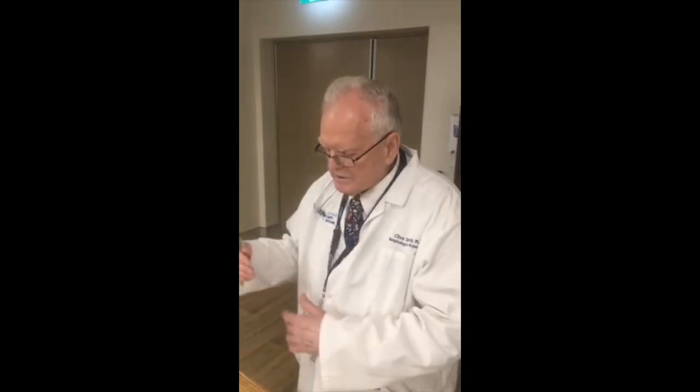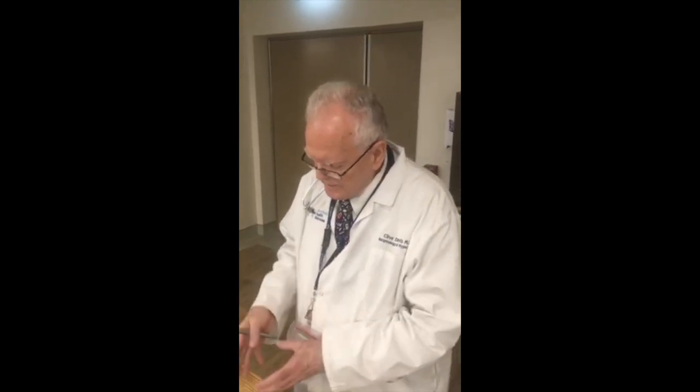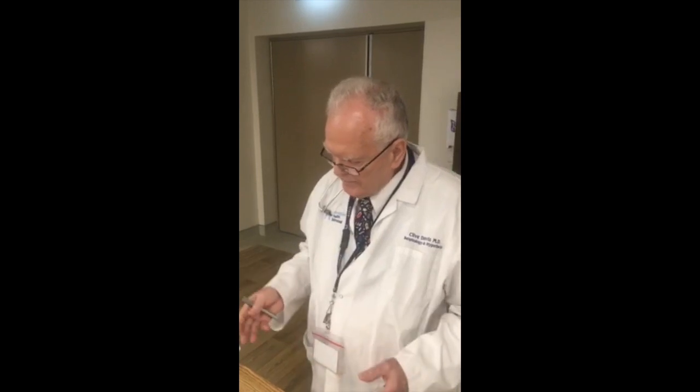Minute volume is the number of breaths per minute times the tidal volume. And in the case of 20 breaths per minute with a 3 second cycle length, we have to adjust the flow rate to get 500 ml tidal volume, and the net 20 breaths per minute times the 500 mils tidal volume equals 10 liters per minute.